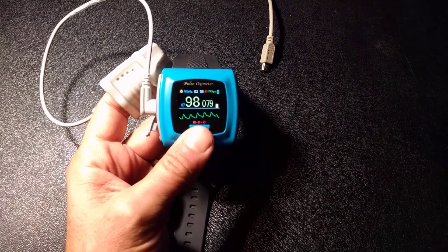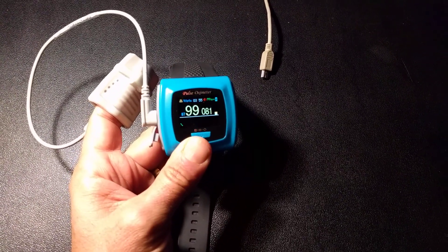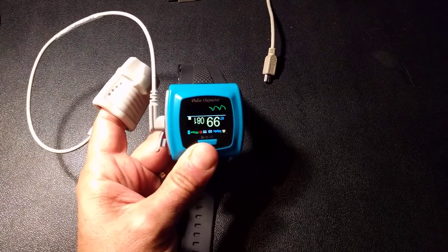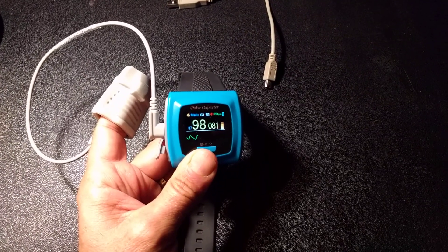Short press and long press. Short press, you just see the time. Short press, go back. Short press, it turns it upside down. Short press, it turns it back. That's short press — you'll see it do all these different little things.